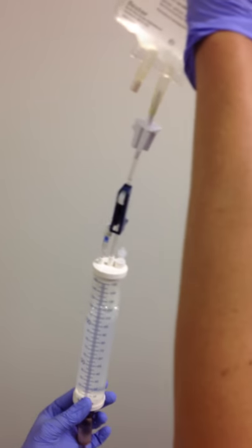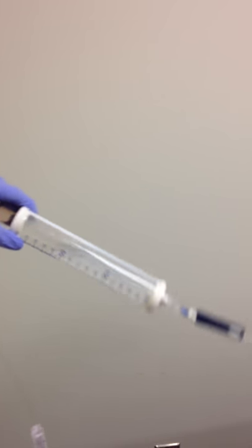To mix our medicine, we'll do a couple tips. You do not want to shake it or the amiodarone will bubble up.